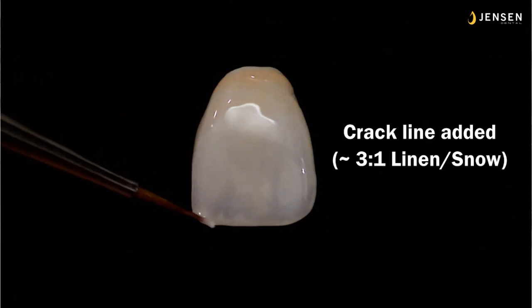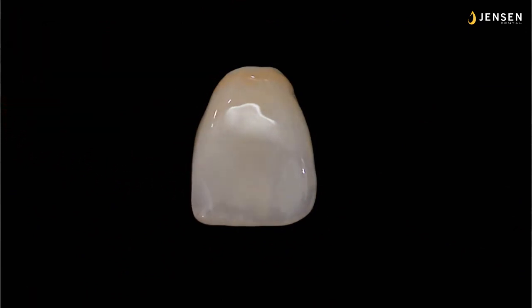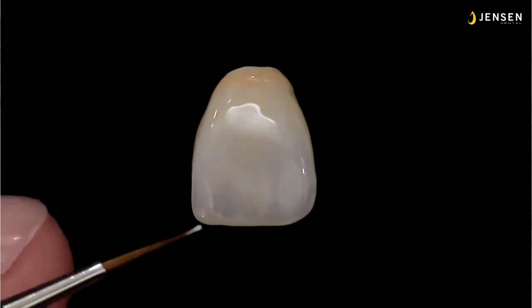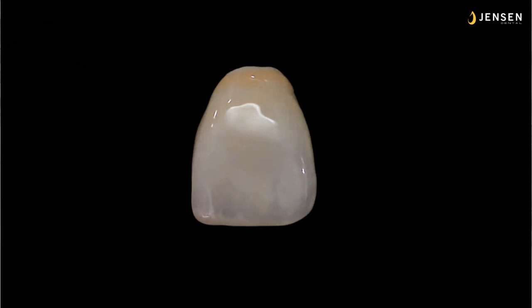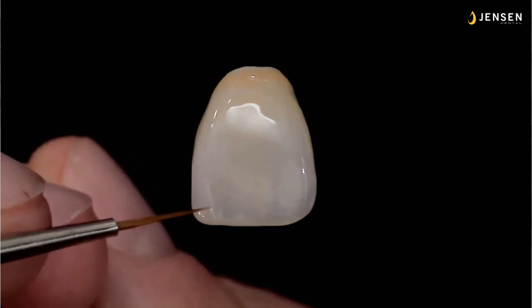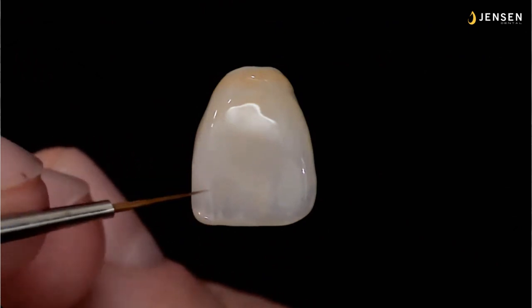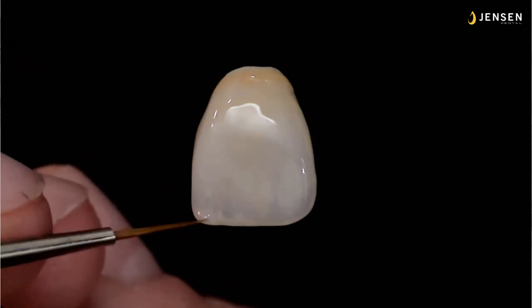So if I want to do a crack line, I normally use about 3 parts linen to 1 part snow. Sometimes I want a little more subtle, 4 parts linen to 1 part snow. You could use the wheat. The wheat's very, very subtle in its yellowness. And I just touch it up with a brush and make it nice and fine. You don't have to get it perfect on the first swipe. Just come back with a very fine, dry brush and adjust and push the line where you want it.